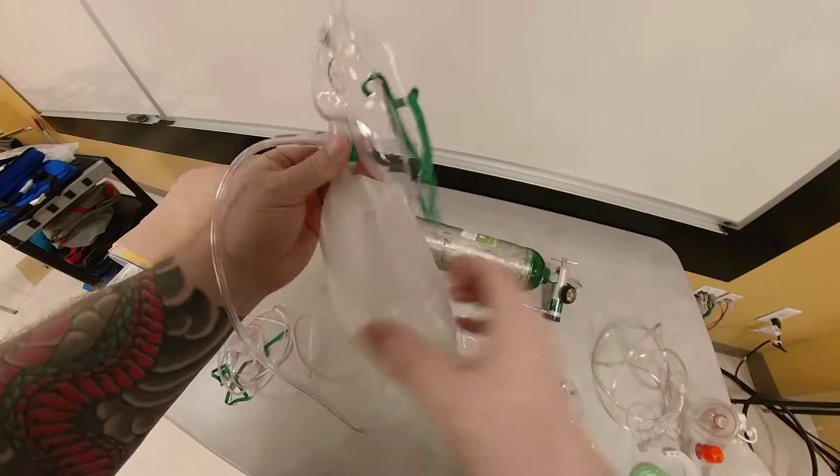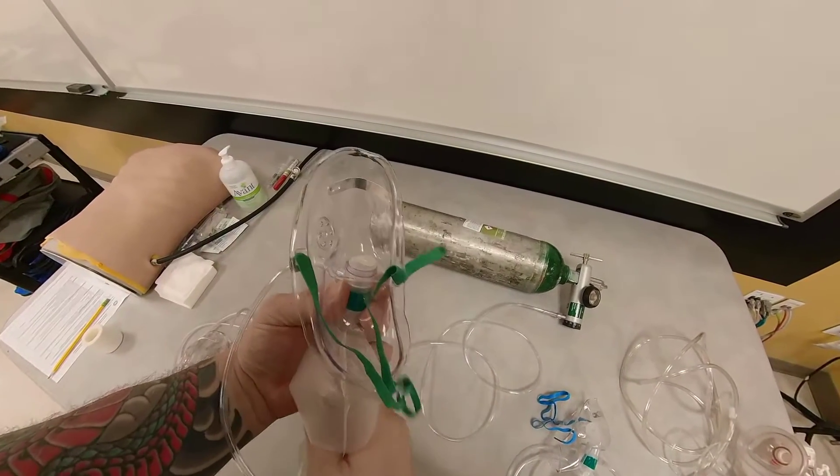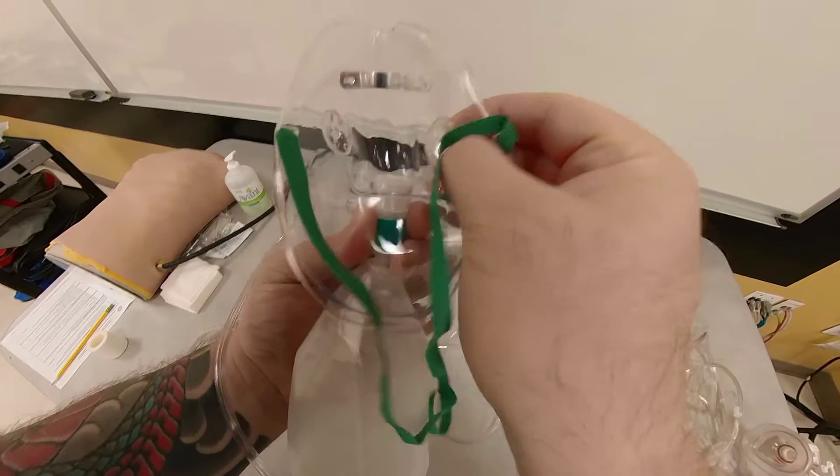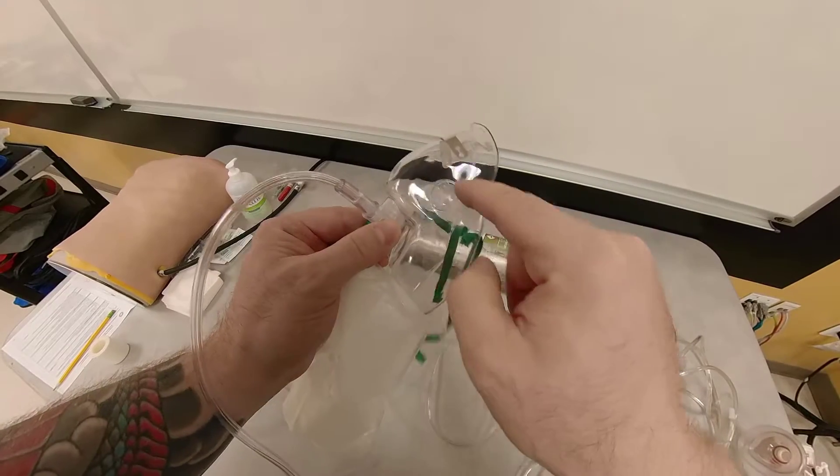So the air comes in through this bag, as I'm showing you here. However, when I take a breath in, this valve closes, so no room air is entrained. But here you still have holes.